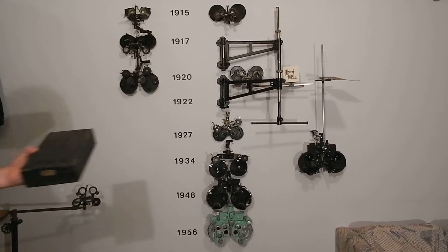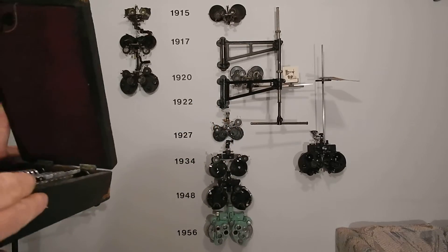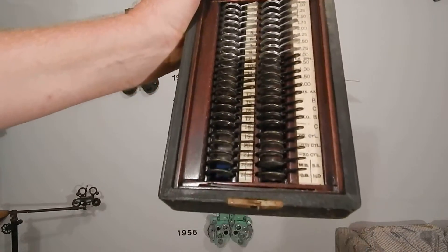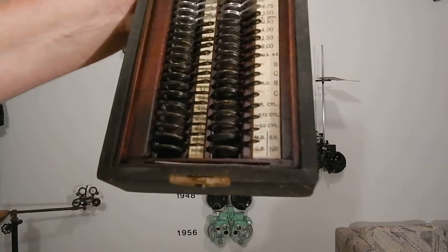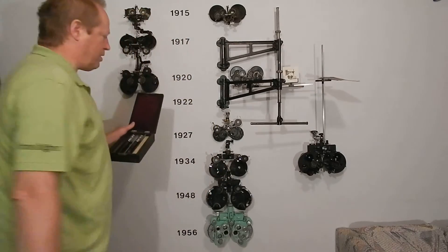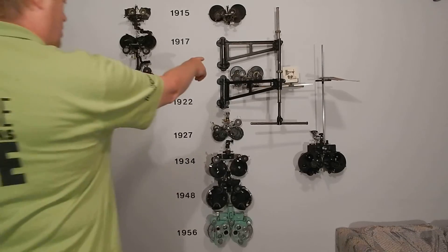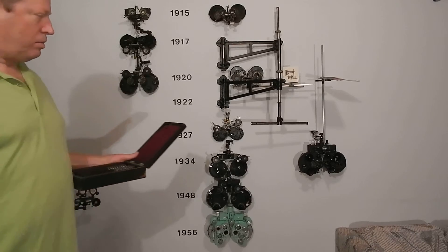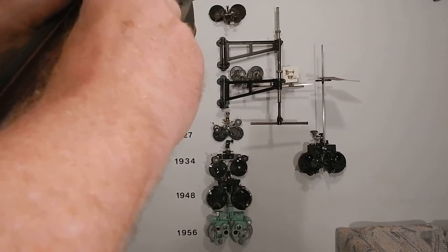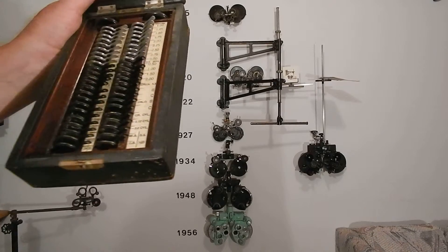And here's a much bigger box of auxiliary lenses — look at that, it's almost like a trial set. Those are for this one. They're bigger because they fit in a larger eye size. This goes from nine-sixteenths to eleven-sixteenths to three-quarter inch; from there on it's all three-quarters. That means the earlier ones had a slightly smaller eye size. All these little lenses include increasing cylinder, all kinds of things.